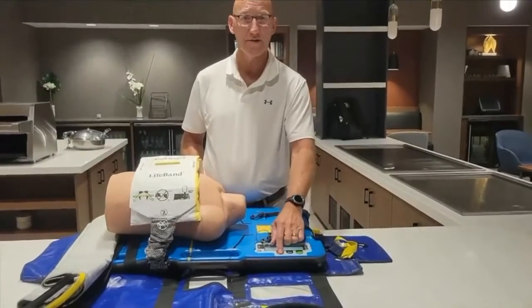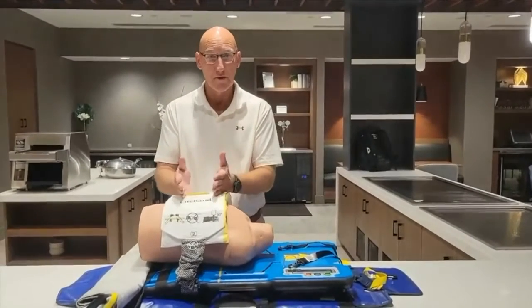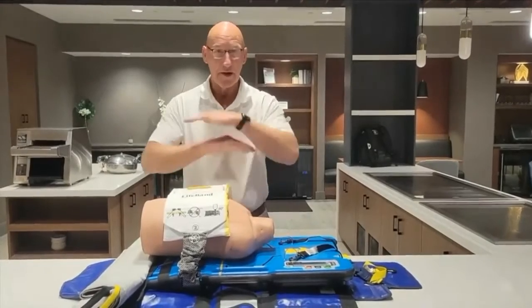The device will pause for three seconds. That three-second pause is designed for you as a provider to sit back and look at your patient, make sure they're properly aligned on the platform — for example, that the yellow line is in the armpit.